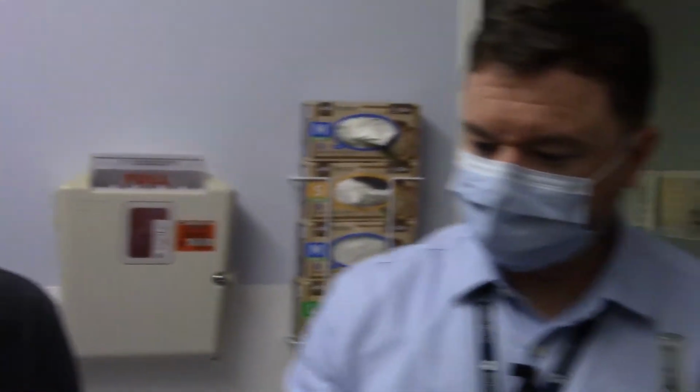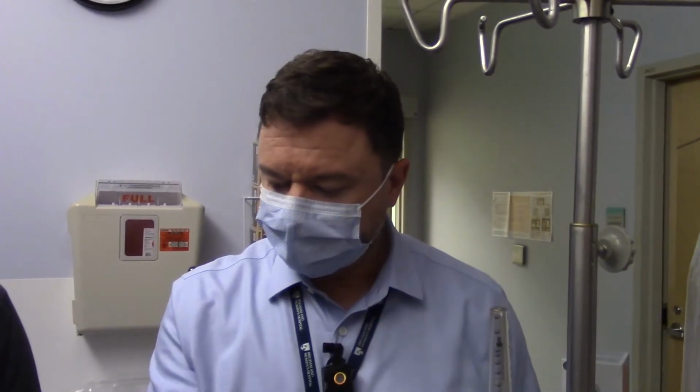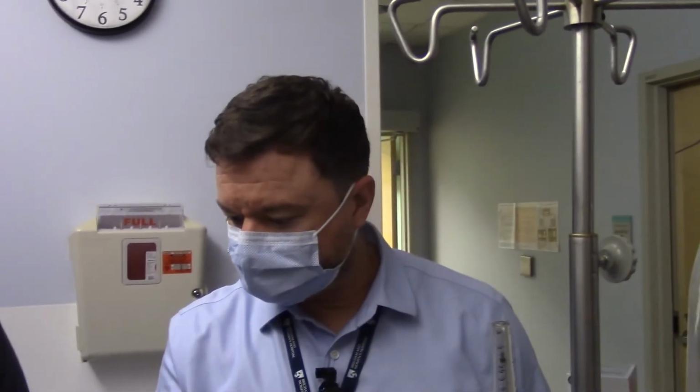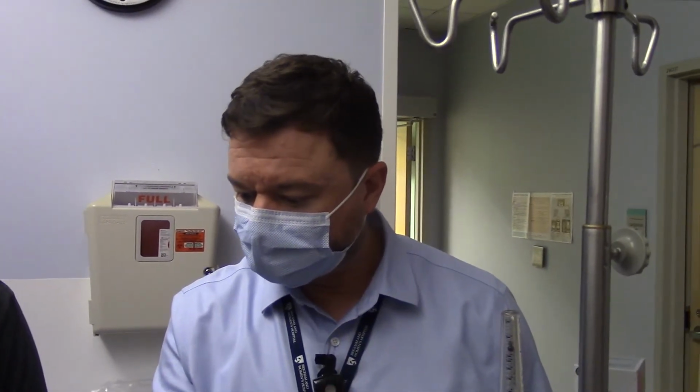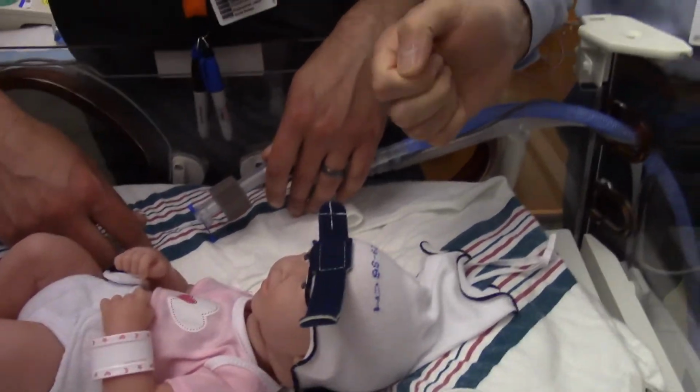I think the only other thing that I would highlight or reiterate too, and David talked about this, is just keep an eye and make sure you're doing frequent skin assessments. One of the things that's a tendency too, if you start to lose your bubble with this interface, we've seen a lot of people just take the straps and cinch them down and really tighten them up good. That's something that you want to avoid. In theory, when you've lost your bubble, it's probably something more about the way that the device is actually sitting on the baby, more so than it needs to be tightened up. Yeah. So tightening that up is going to cause breakdown.